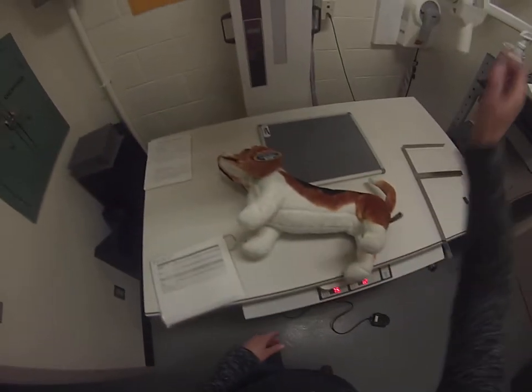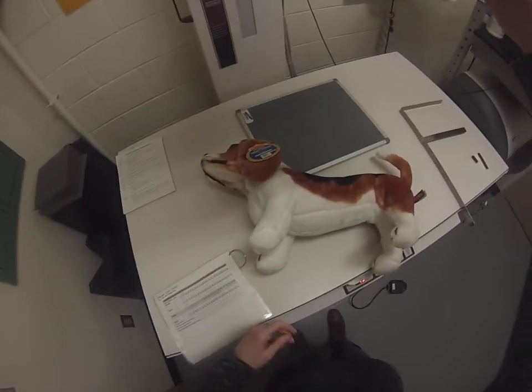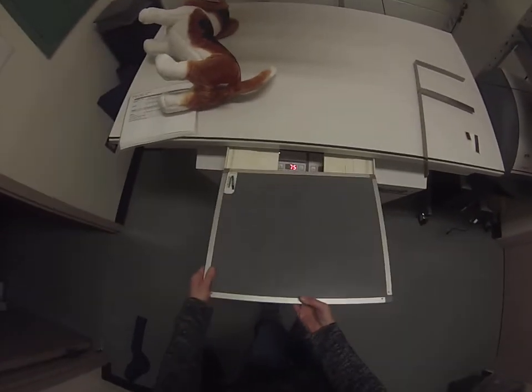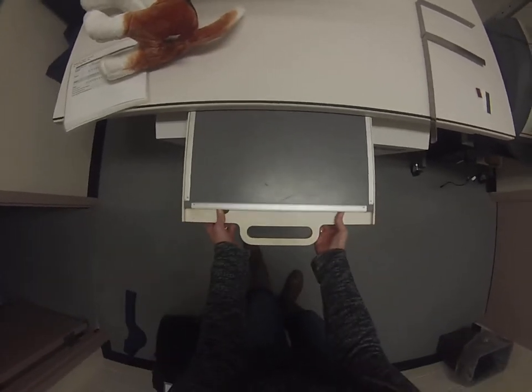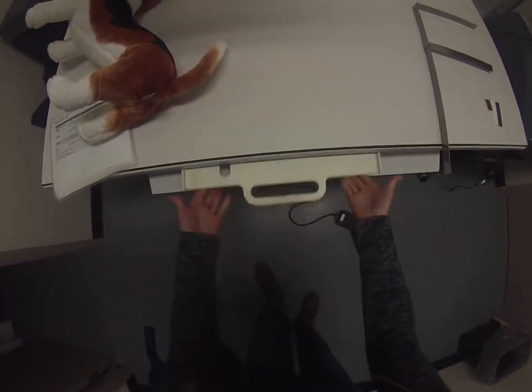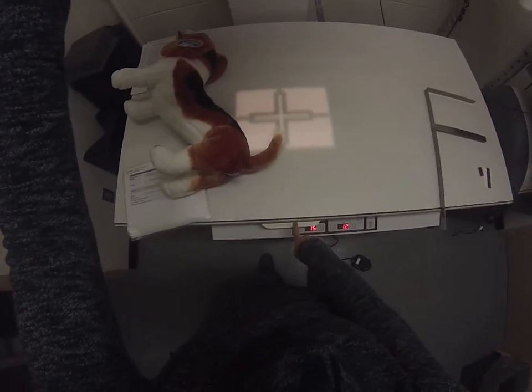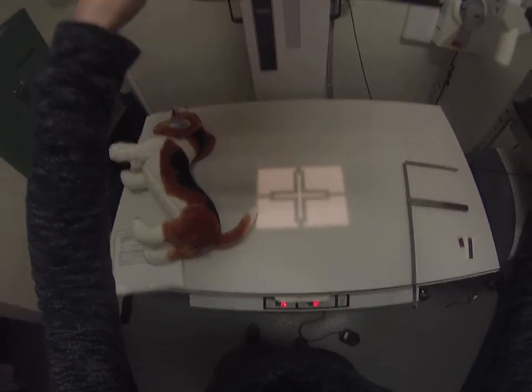Because we're going to use the film tray, we need to slide our tube head down into the film tray position. We then take our cassette and insert it into the film tray, commonly referred to as the bucky or bucky tray. Make sure when you put your cassette in the bucky tray that you slide it all the way back — it should lock into place. When we turn on our light field and move the tube head, the cassette in the bucky tray moves right along with it, ensuring things remain lined up correctly.